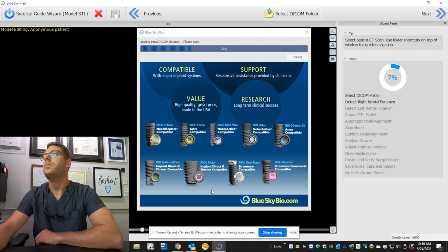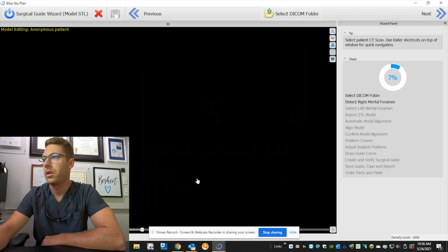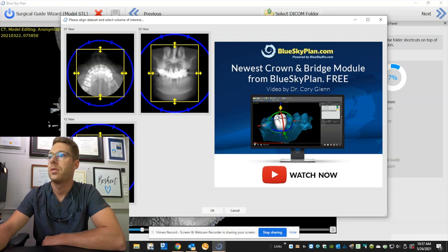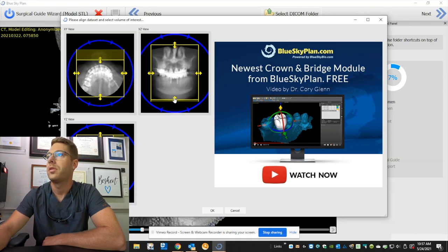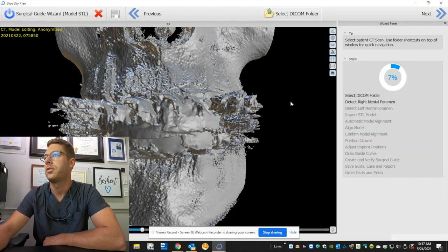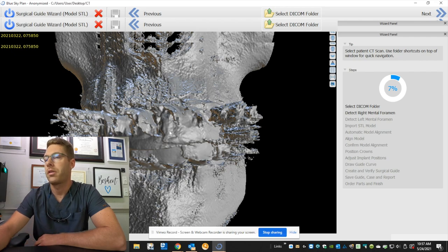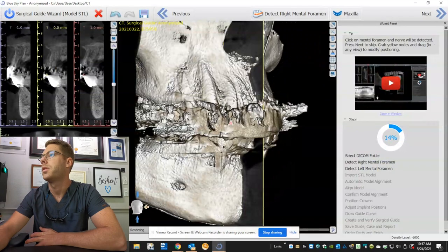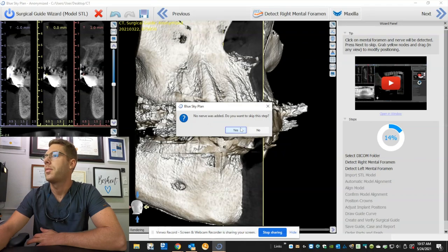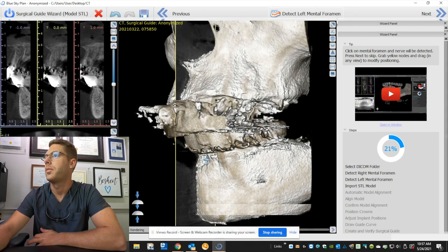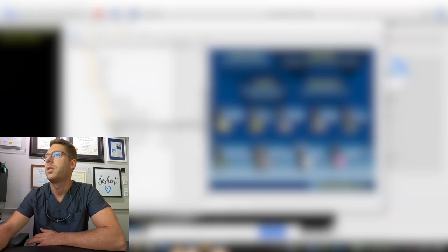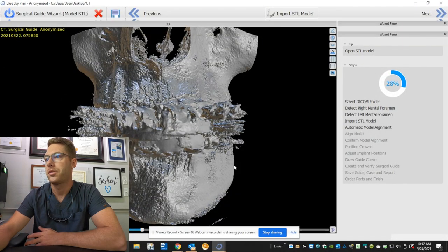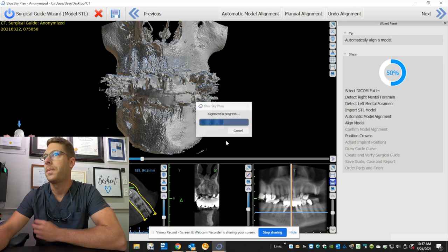Okay once we have our CT in place I am going to get it aligned. Since I'm not going to be placing implants on the bottom I'm not going to map the nerve out here in this case. This is an algorithm 3D image it's not very accurate I don't use it to plan implants but we're going to skip through the detection of the mental foramen because I'm not placing implants on the lower I'm only doing them up top and now I'm going to bring in her scan of her top teeth and then we're going to match it to the CT so we're working on the maxilla.